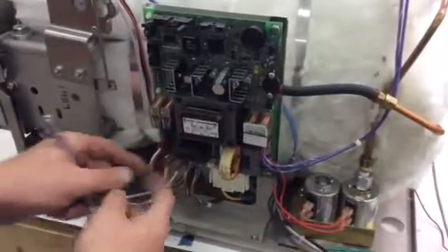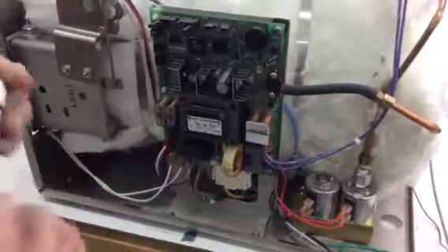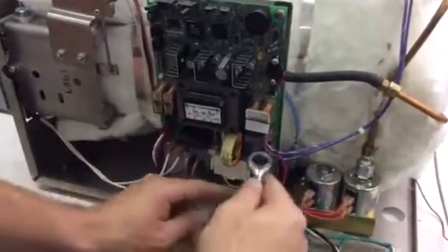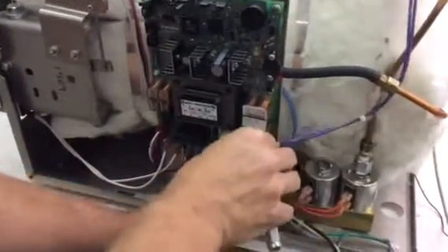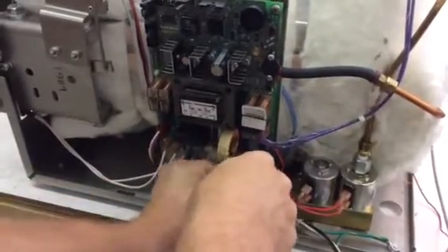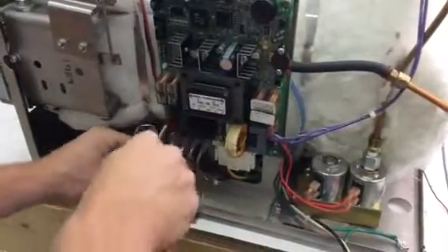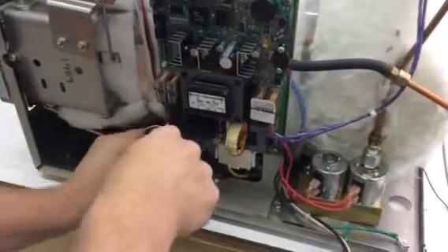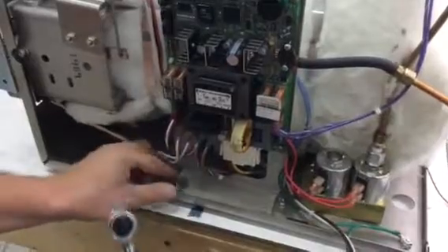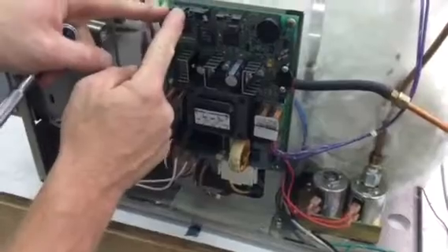I'm going to show you how to do that. You might want to take a couple pictures to show where all the wires go, or refer back to the video. Basically, you're going to need a 3/8 ratchet or wrench to disconnect the board from the mount. Just loosen that up — one screw here, keep an eye on those so you don't lose them, and another there. That will loosen the bracket from the machine.